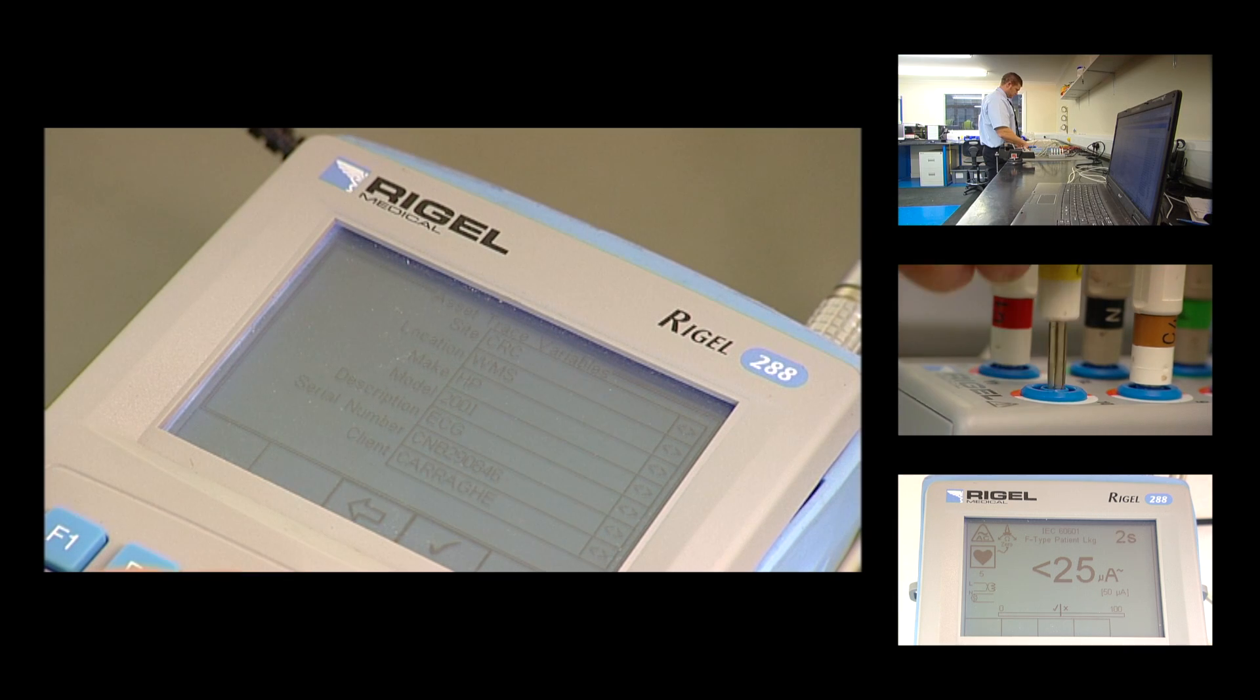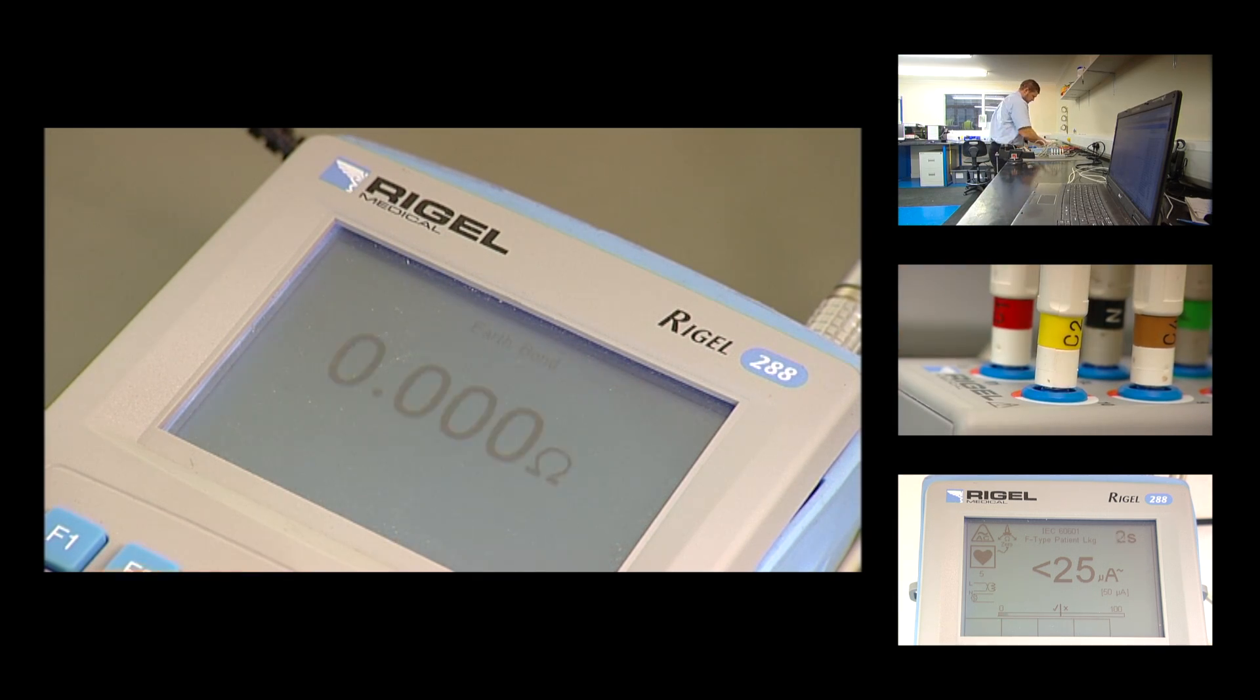We can leave the equipment because it's fully automatic. I don't think there's anything else on the market that comes close to what the 288 does, purely because of how efficient it is to use and how small and compact and transportable it is.